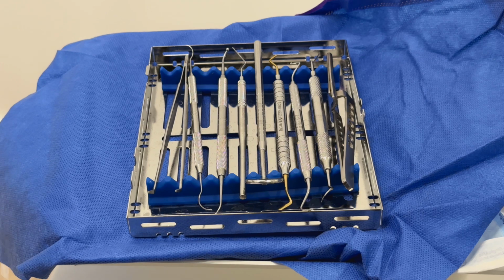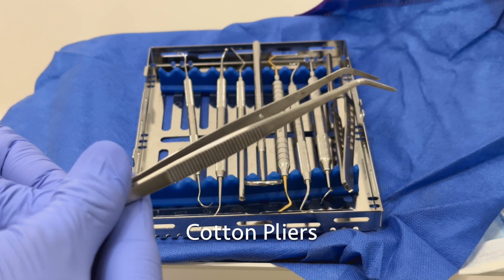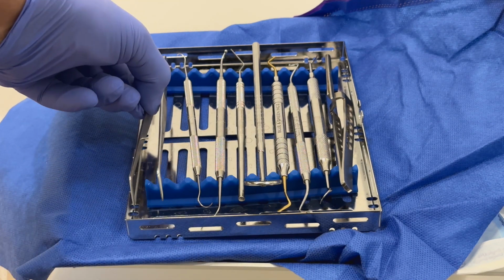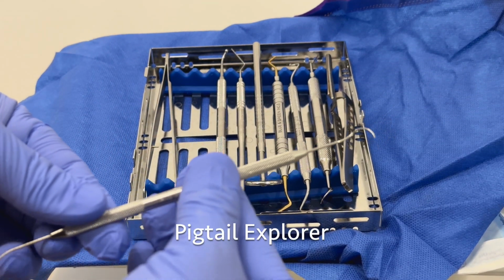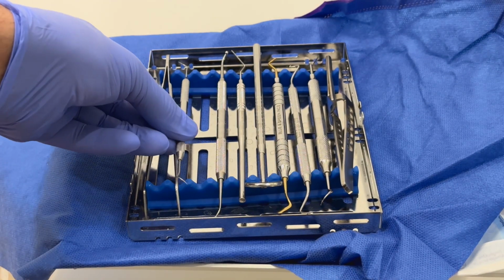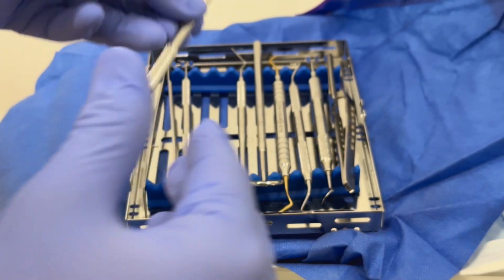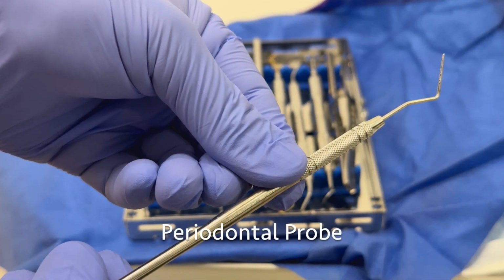In our restoration cassettes, we typically have quite a few different handpieces. For starters, you'll always have cotton pliers. This is for doing things like handing items and materials to the dentist, in and out of the oral cavity. Next, we have our pigtail explorer. There are several types of explorers. Our office and our dentist just prefer the pigtail explorer for restorations. A ball burnisher, typically not used for composite restorations, but some dentists do like it for composite in some cases.